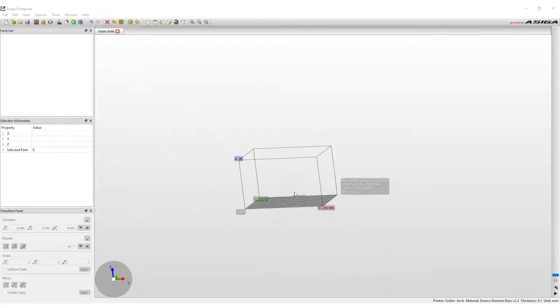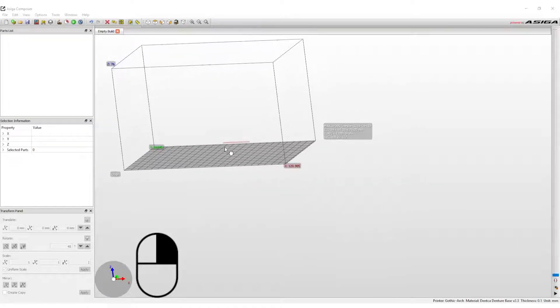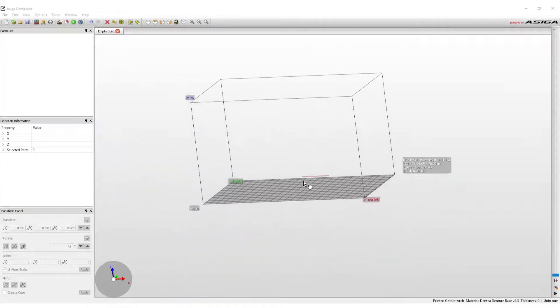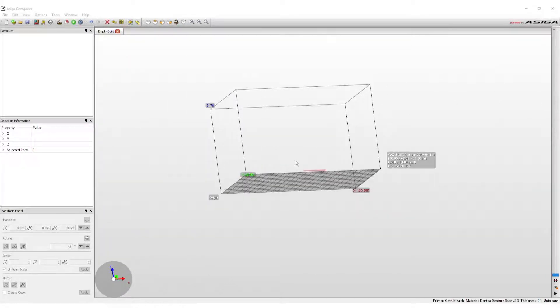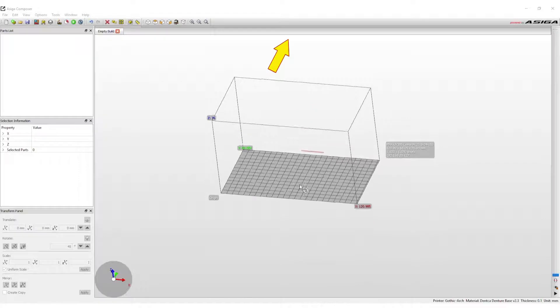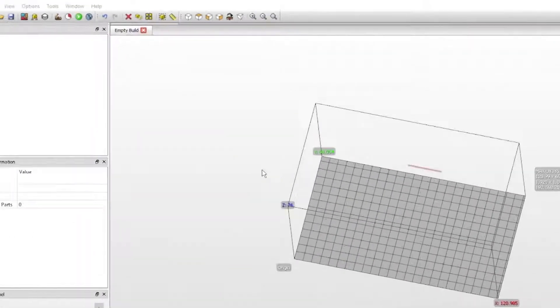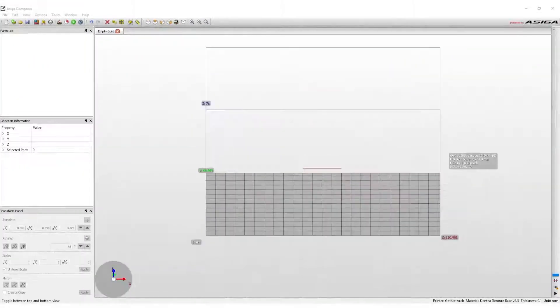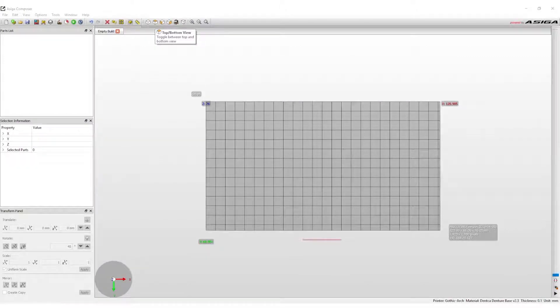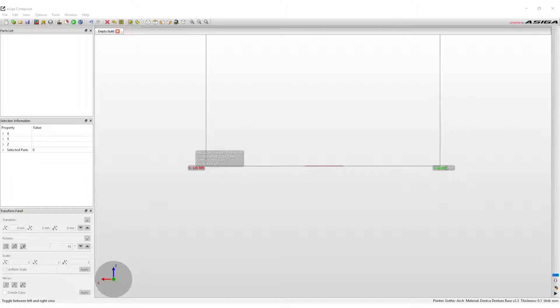There are several ways to view the build envelope. To move the envelope around, press right-click and hold whilst moving the mouse. The scroll wheel on the mouse controls zoom in and out of the envelope. To move the envelope to different sections of the screen, left-click and hold whilst you move it to its desired location. There are also view options located on the toolbar along the top of the screen. Here you can select to view the top or the bottom of the build, the front and rear, or the left and right side.